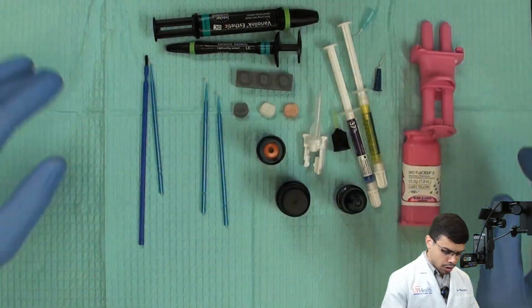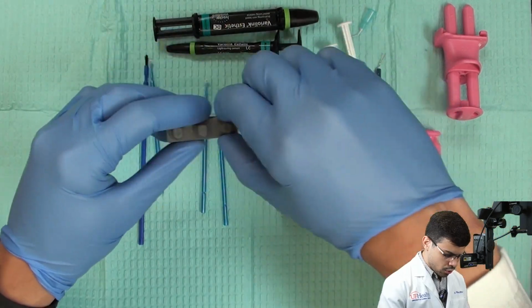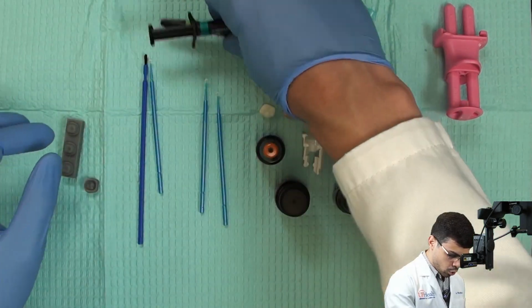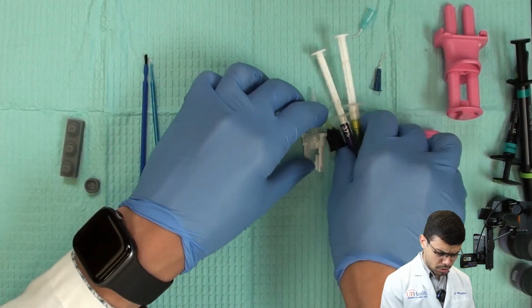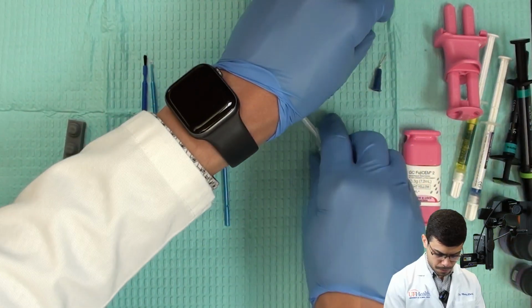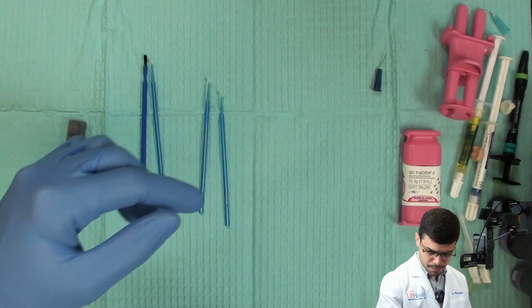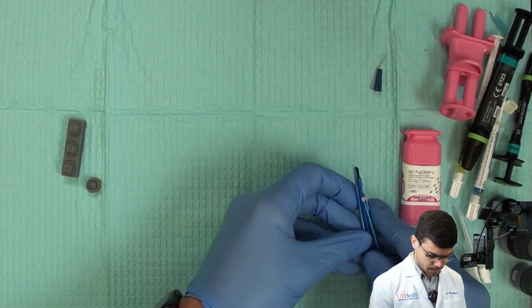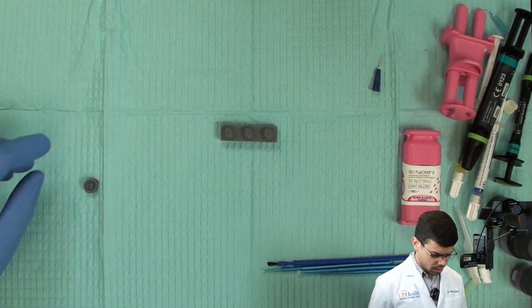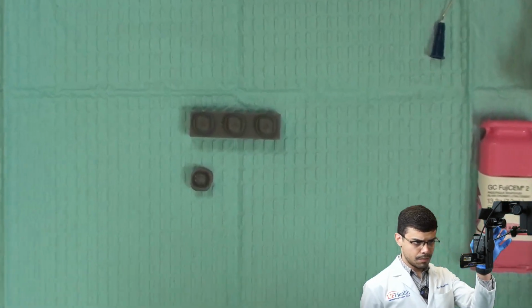All right, so here we go. I will start cleaning up the station so we can go one by one. So let's start with the full metal crown. I will take away everything that I don't need for it. Very nice. I'll put this to the side here, and I'll keep only the things that I will need. So I'll zoom in here. There we go.